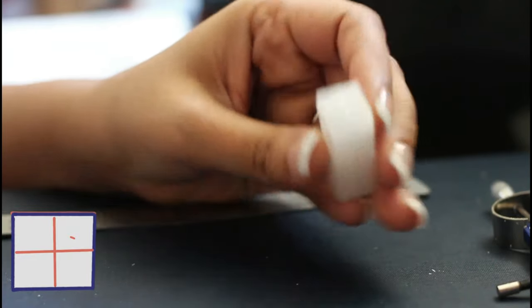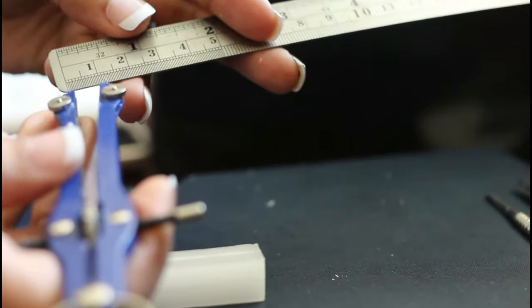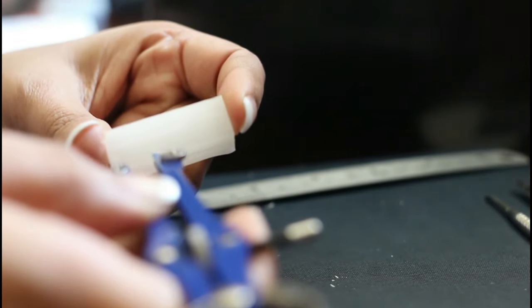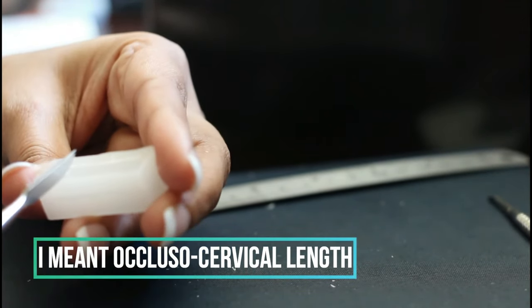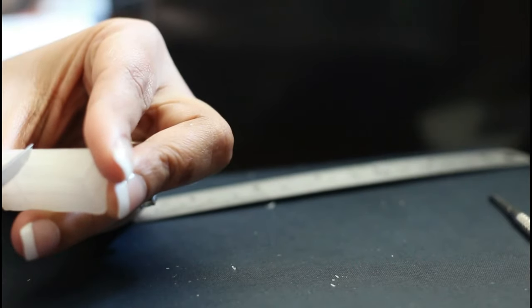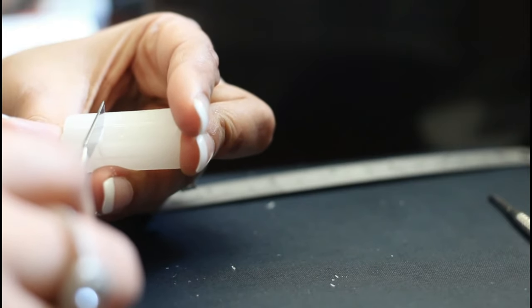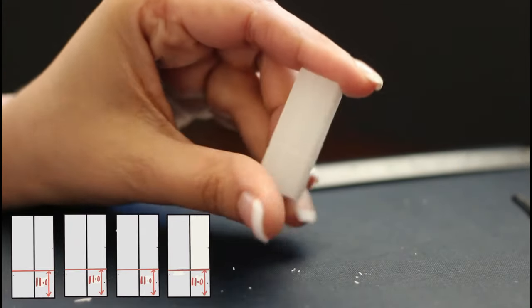Now you want to mark the center of the small squares on both ends by joining the endpoints of all the bisecting lines. Let's measure the crown dimensions — the crown measures 10.5 mm in length, so let's use 11 mm for reference. You always want to have 0.5 mm of room while carving wax for errors, so mark 11 mm on all four surfaces.